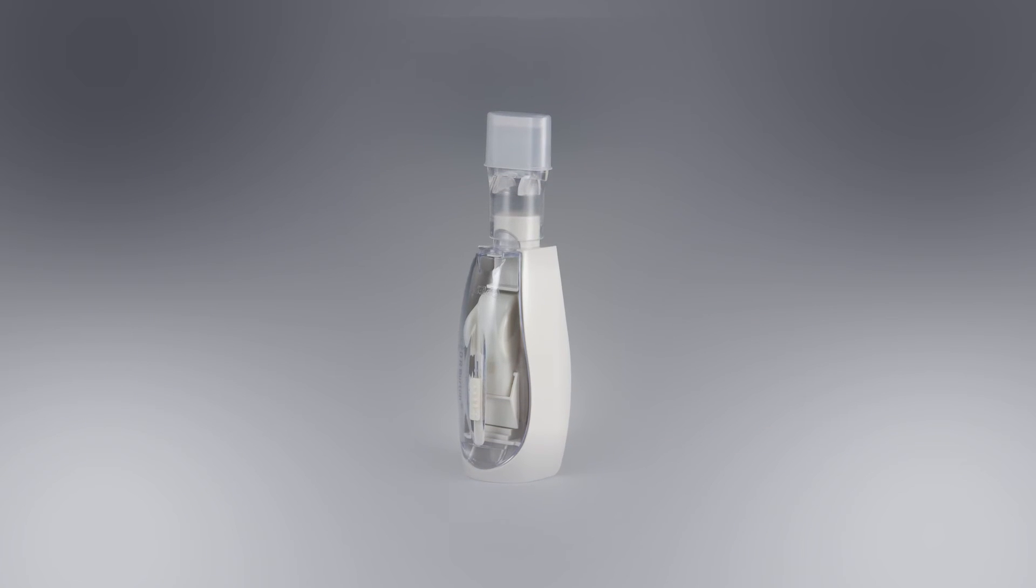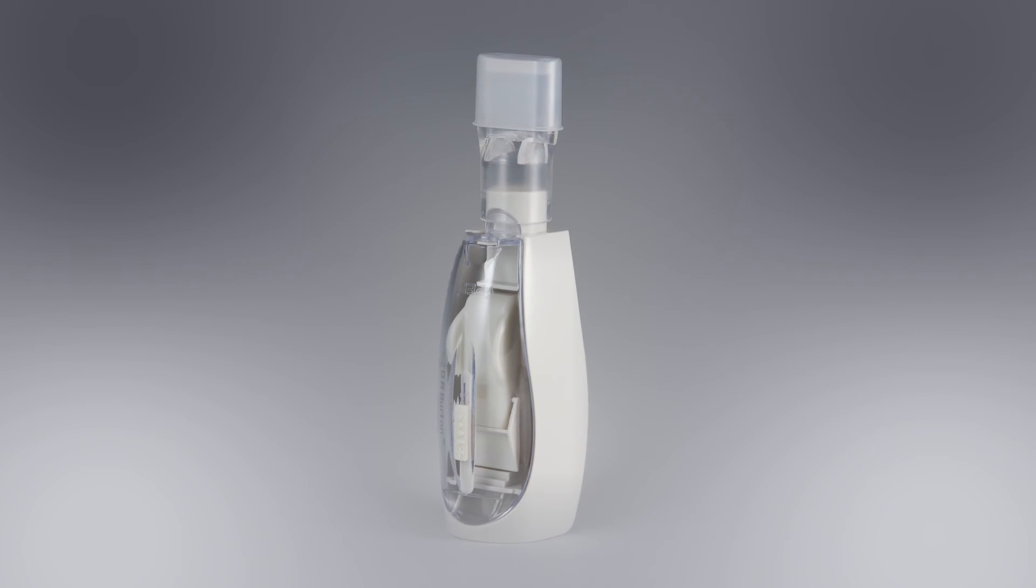Lastly, we repeat the lung simulator with the VPEP device from DR Burton. This device uses a completely different mechanism that reduces expiratory flow resistance and increases inspiratory flow resistance, which produces the greater expiratory flow bias needed to move secretions.